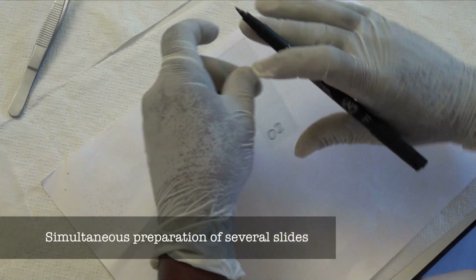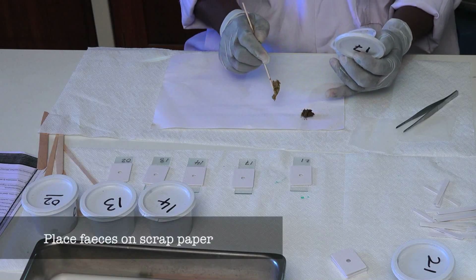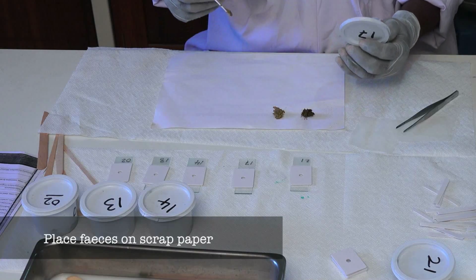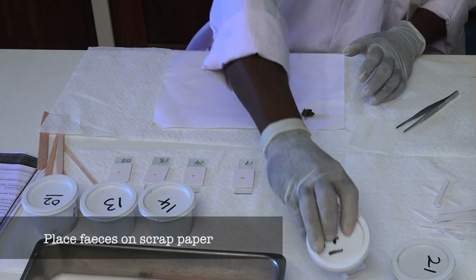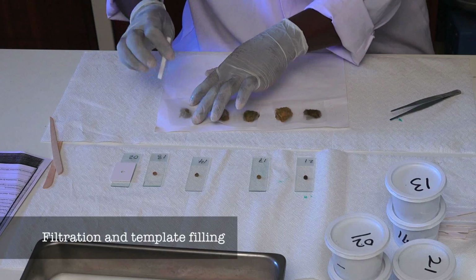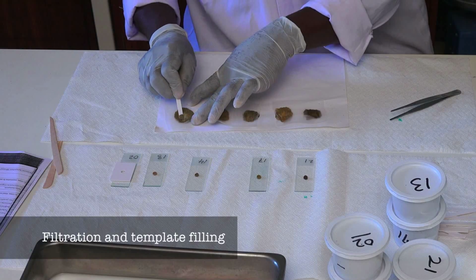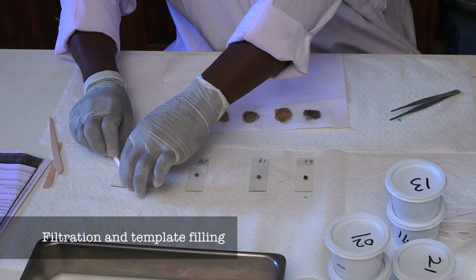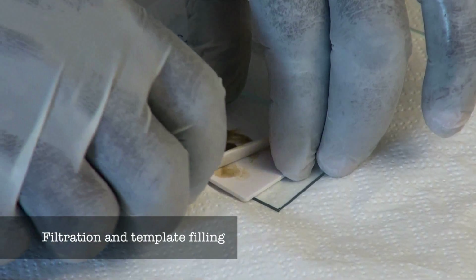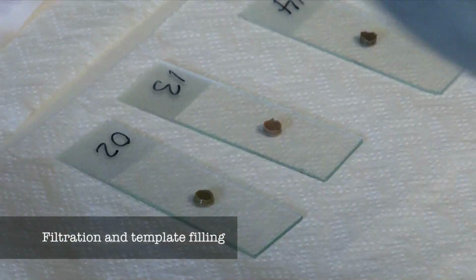For simultaneous preparation of several slides, mark more slides with corresponding identification numbers. Take a small mound of feces from each container and put it on the scrap paper one after the other. Filter each specimen using a new screen and a new spatula, and collect the screened material to fill the templates on each corresponding microscope slide. Remove the templates.